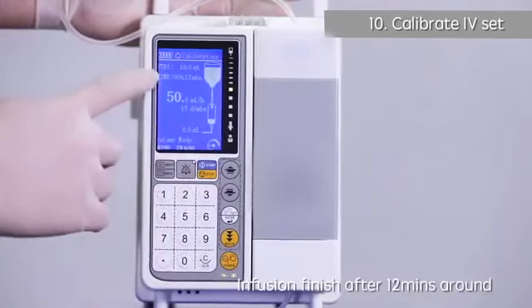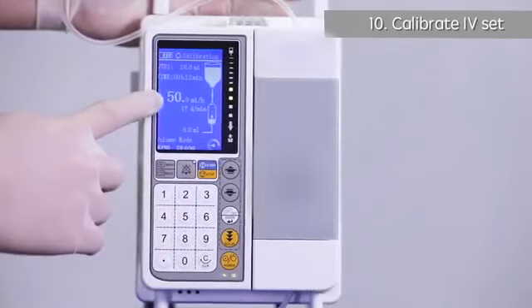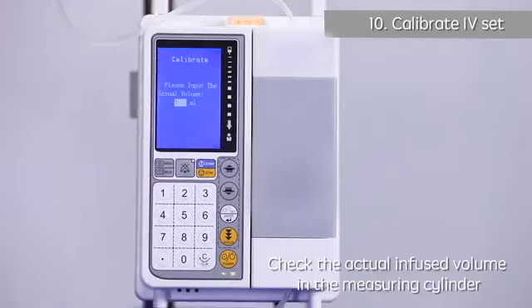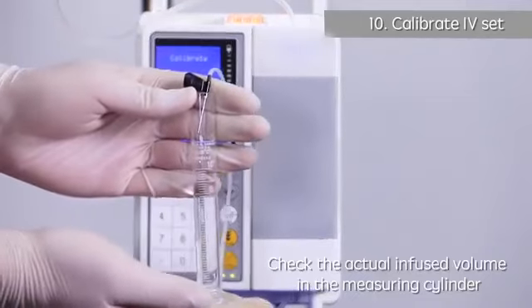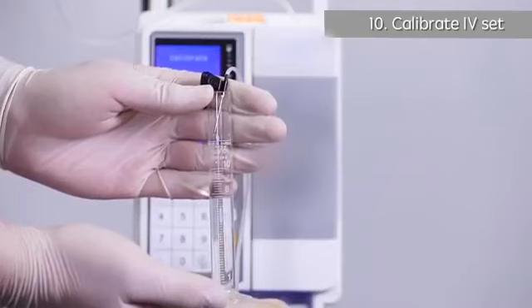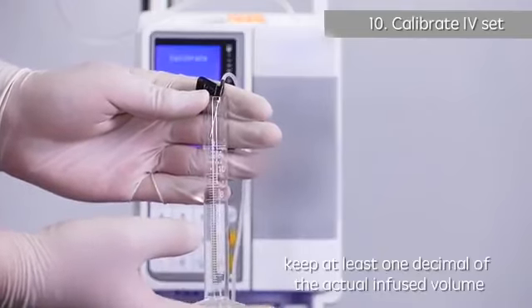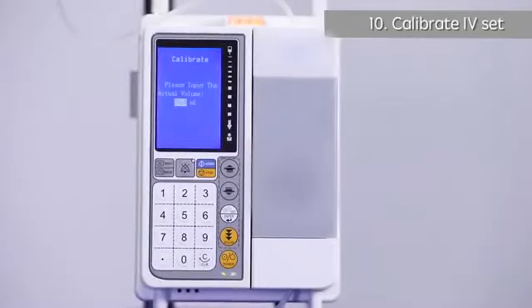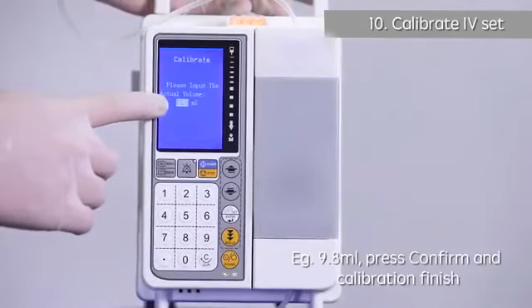Infusion finishes after around 12 minutes. Check the actual infused volume in the measuring cylinder. Keep at least 1 decimal of the actual infused volume, for example 9.8 ml.